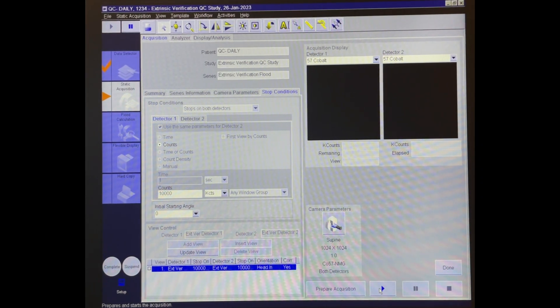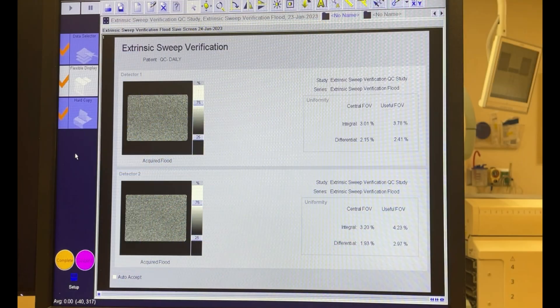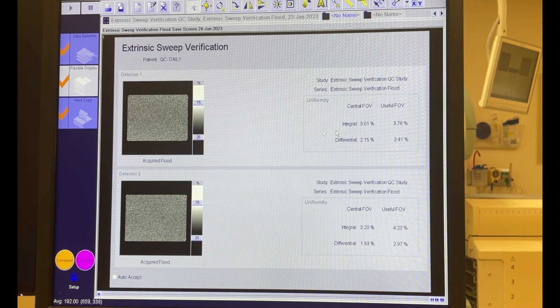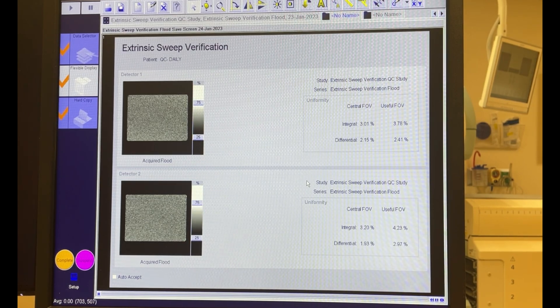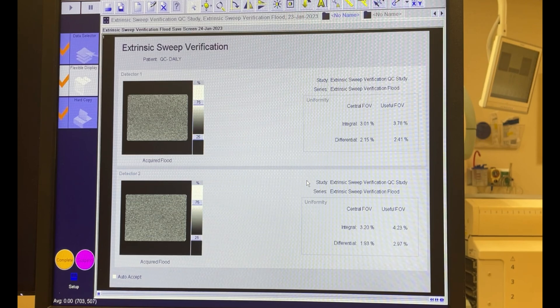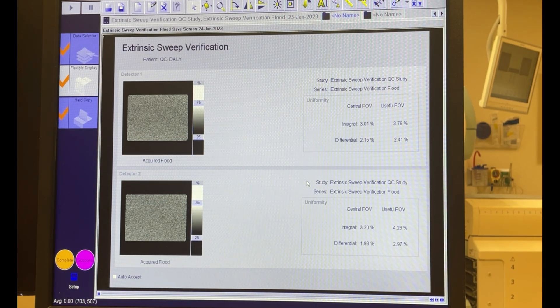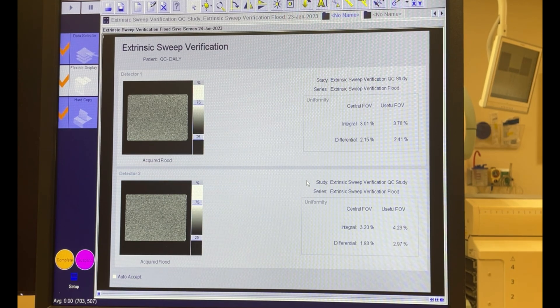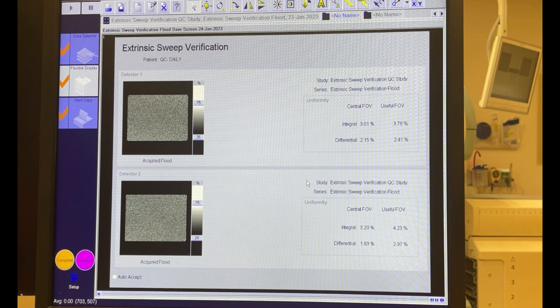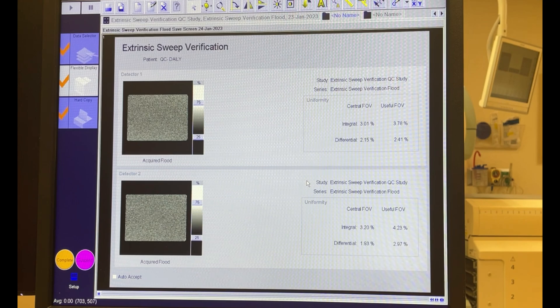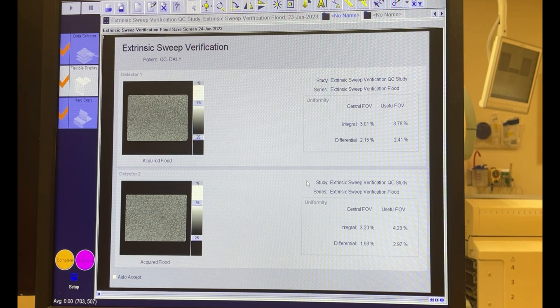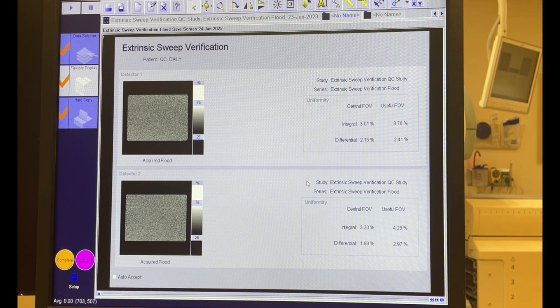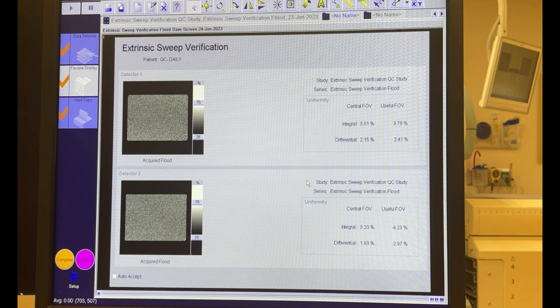Both images are labeled, so we can prepare and start. Our flood's completed, and we can take a look at the quantitative values — all of those look good, they're all within the acceptable criteria, the pass criteria for this system. If you want to take a look at what those values should be for a Siemens Symbia, which is what we're on, you can go back and look at a previous video about Symbia gamma camera quality control. You can also take a look at the flood images here and evaluate those for any kind of non-uniformities. You want to make sure that they're nice and uniform, and you're not seeing any tubes or any other artifacts displaying in your image.